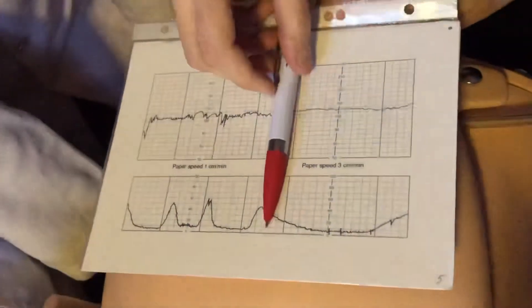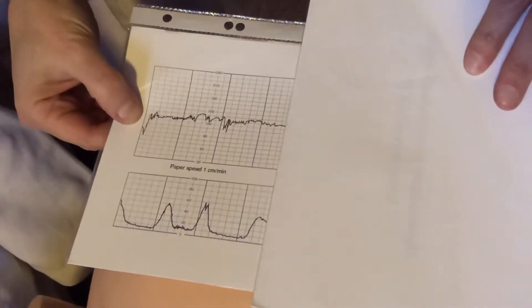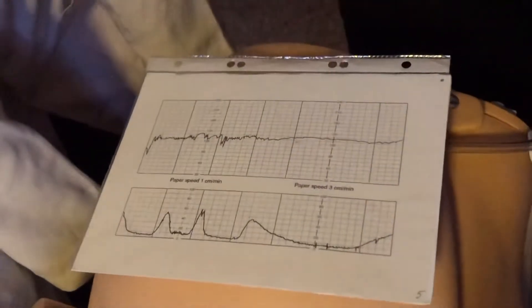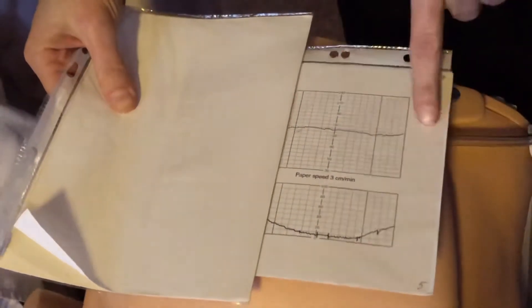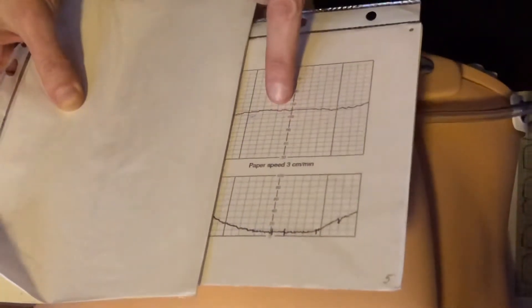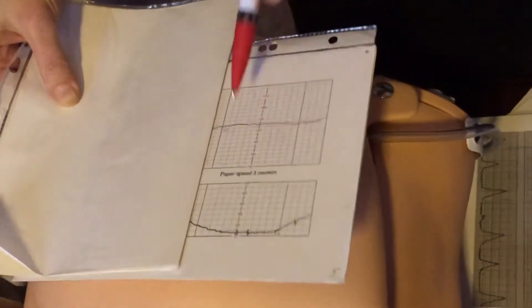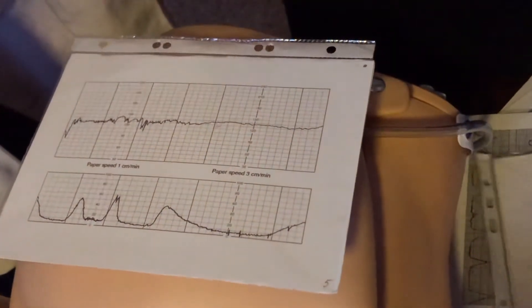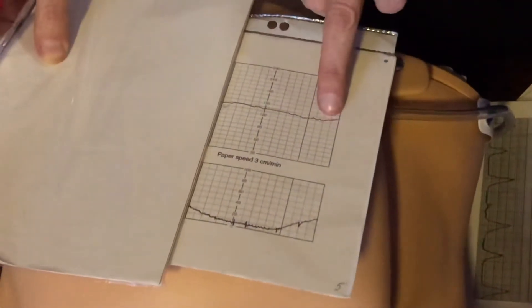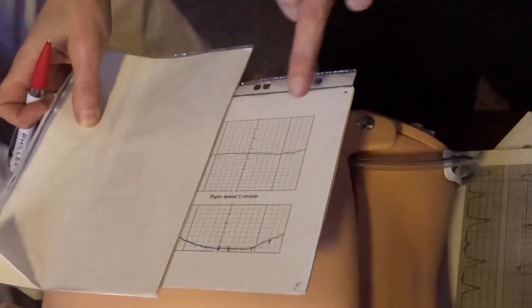From this moment to this moment you see normal fetal heart rate and normal amplitude — so several minutes you see normal fetal condition. But my teacher, from this moment to this moment, I see normal fetal heart rate, around 140–130, but in this situation it doesn't matter. Because what I see — I see monotonic rhythm. Low amplitude. This is normal amplitude here. Normal amplitude plus normal fetal heart rate. But from this moment I see normal fetal heart rate but low amplitude — less than 5 beats per minute. So this is monotonic rhythm.